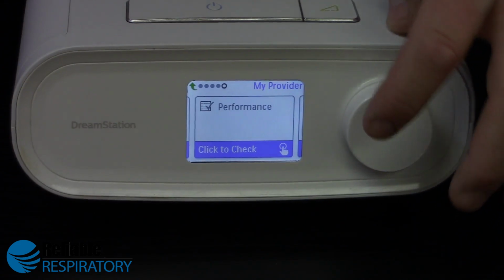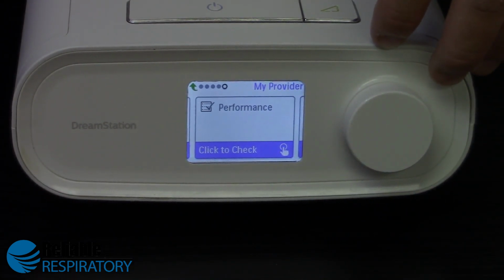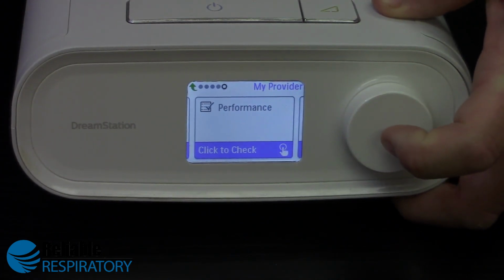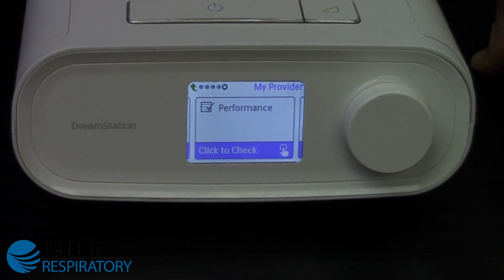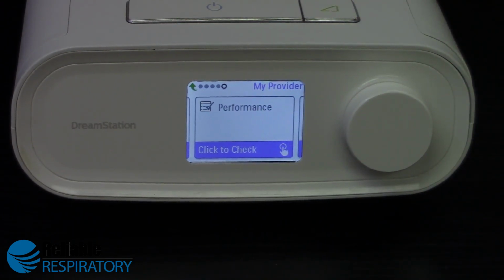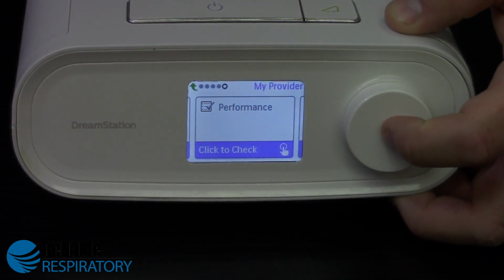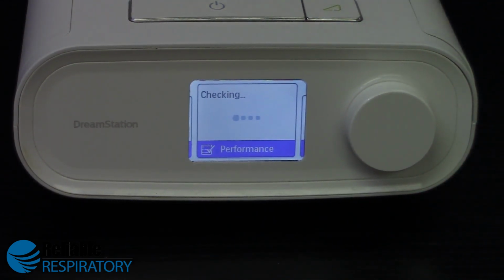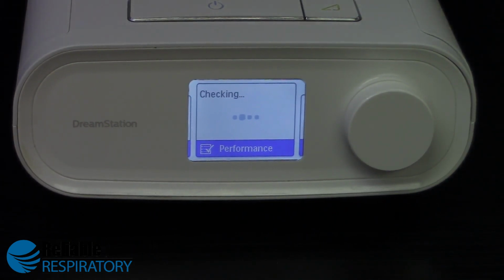Last on here is something called a performance check. This is actually probably the one useful part of the My Provider section, where if you think something's going wrong or awry with your CPAP machine, it'll run a self-diagnostic. And to do that, you just go ahead and click the dial. And it'll check through, run the motor, and spit back any error codes if there are in fact any.